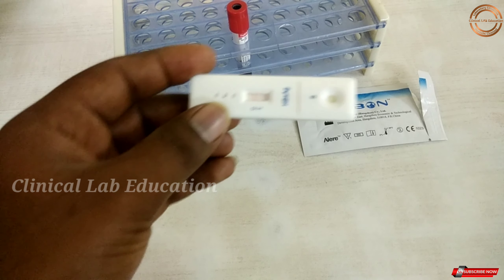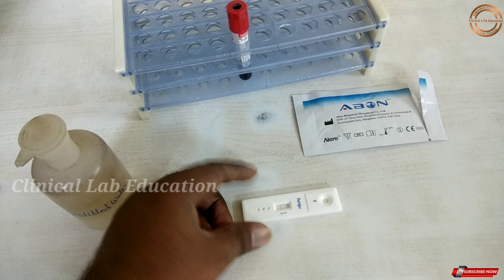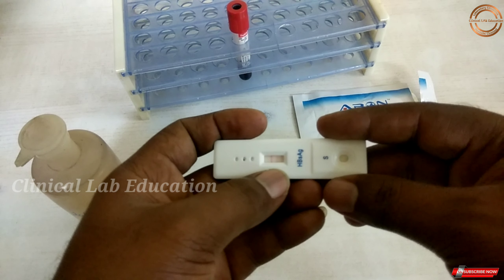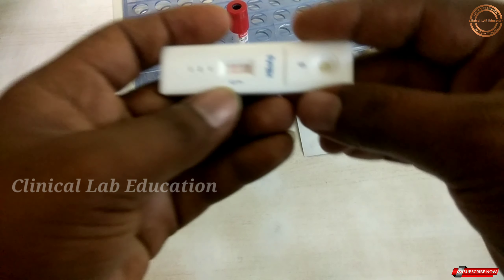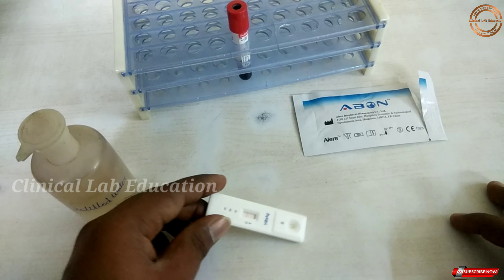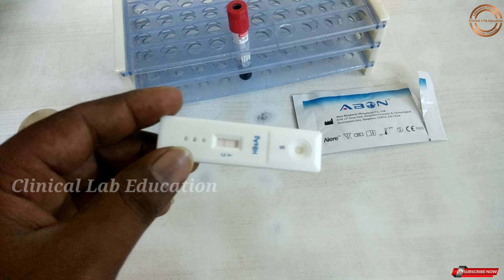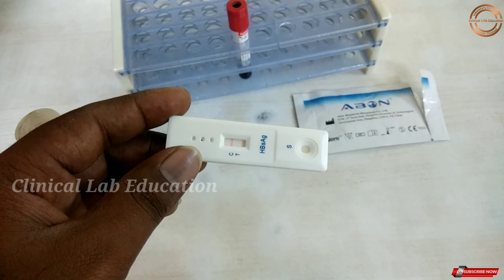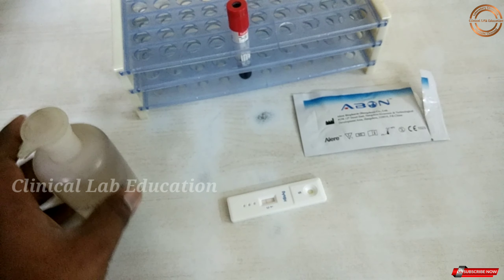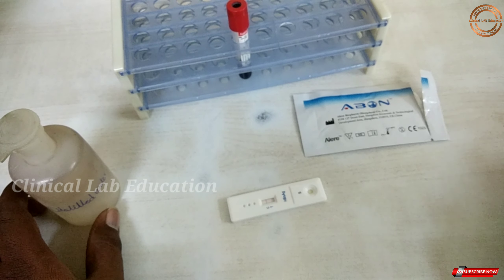We get a clear line. The patient has a negative result — only the C line is visible. If it's positive, there would be a clear T line as well. In this case, the patient result is negative.